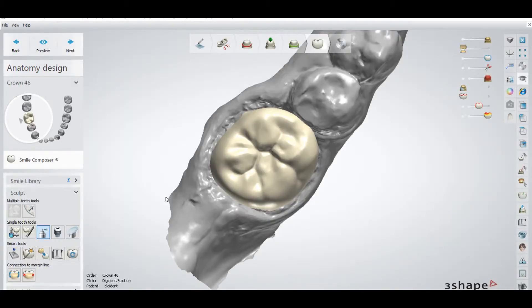Welcome to Digital Dental Technology Solution. Today I will talk about the minimum thickness option in the 3Shape Dental Designer — how you can check the minimum thickness, how you can change the settings, and how you can make sure your minimum thickness is okay to mill with the restorations so you will not get holes after milling.